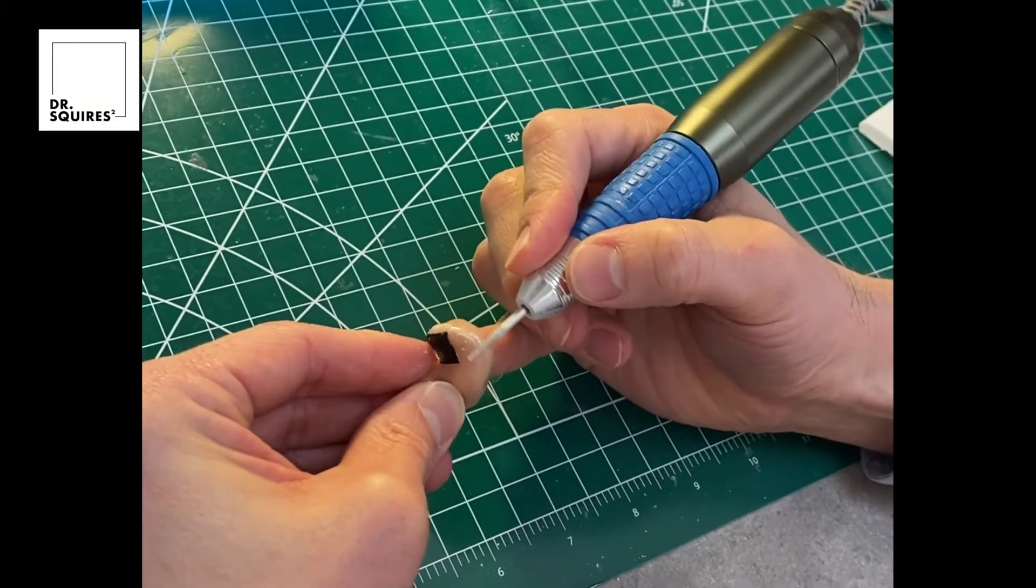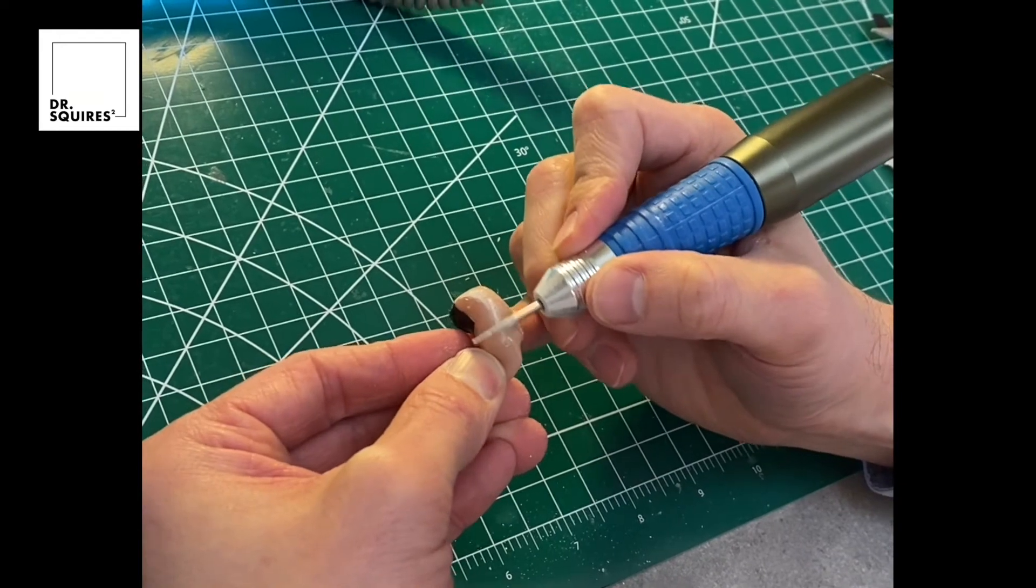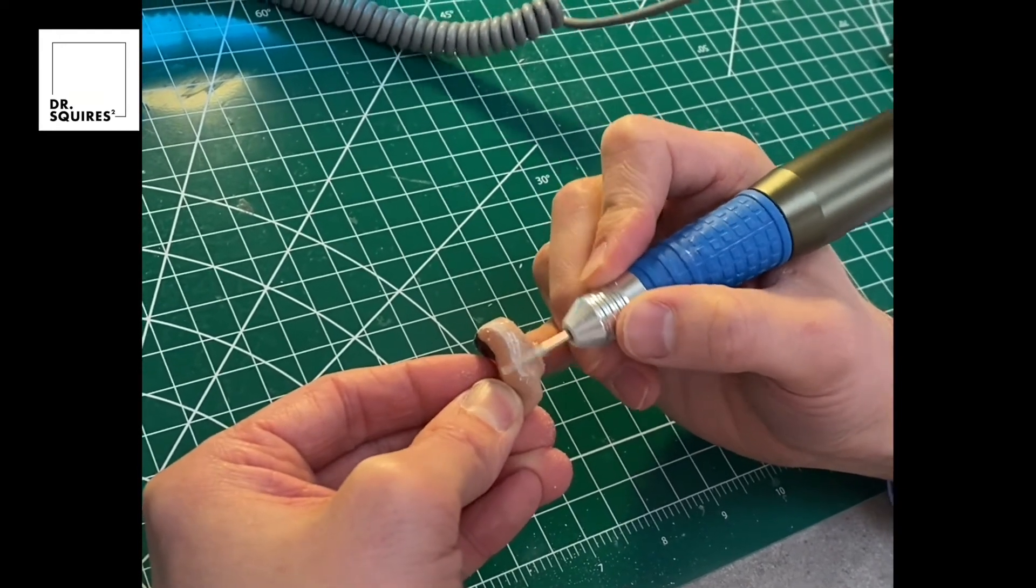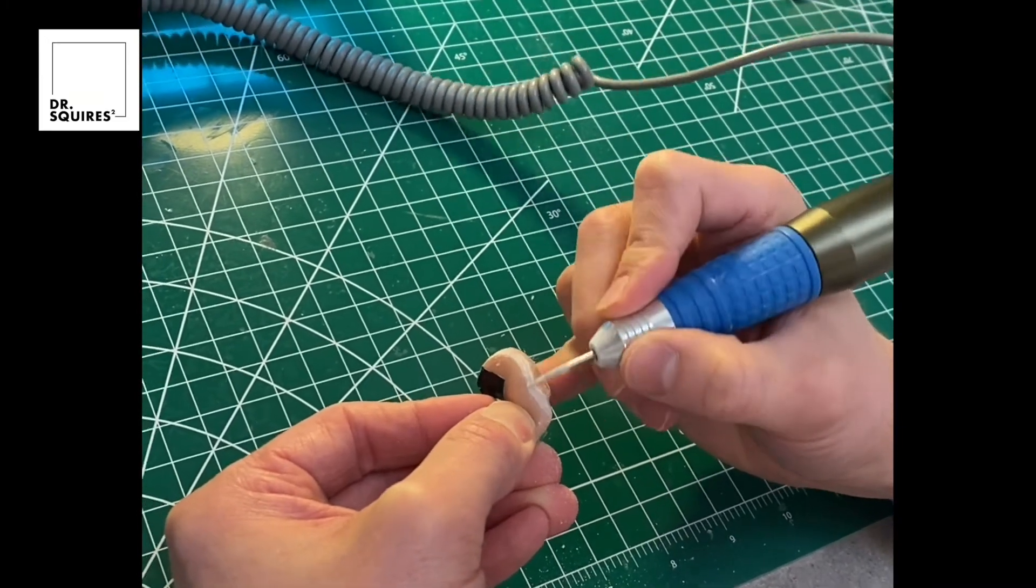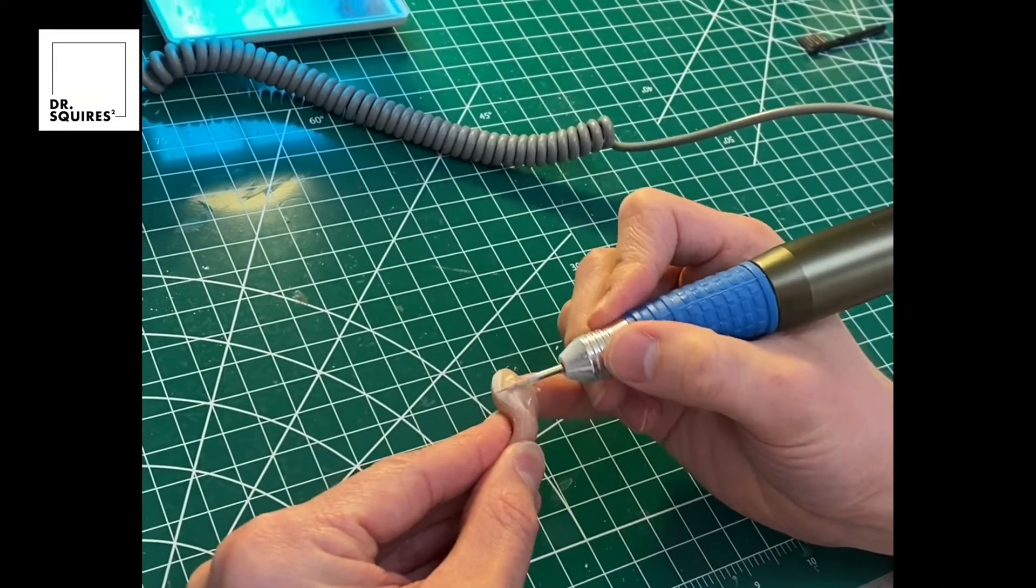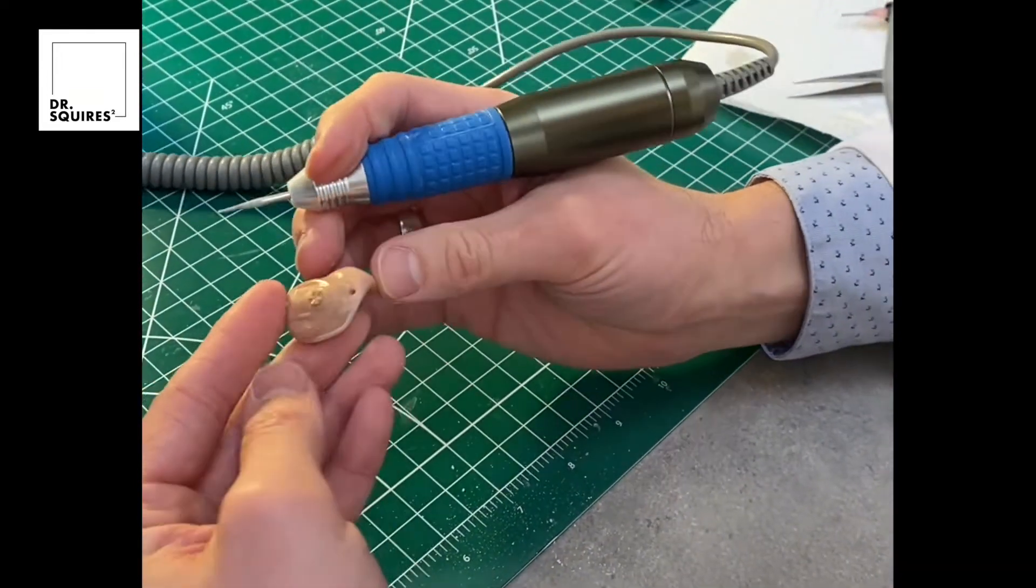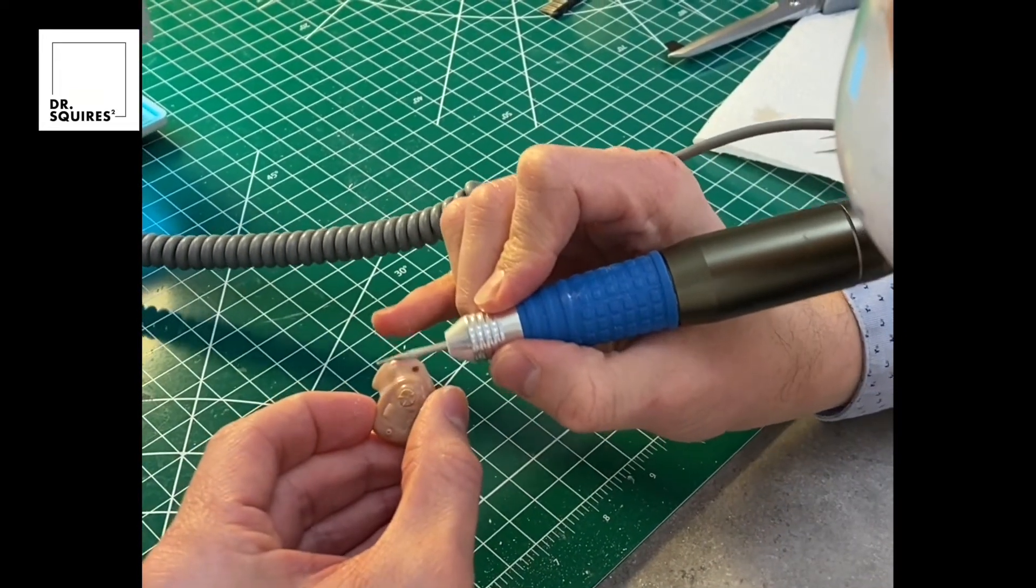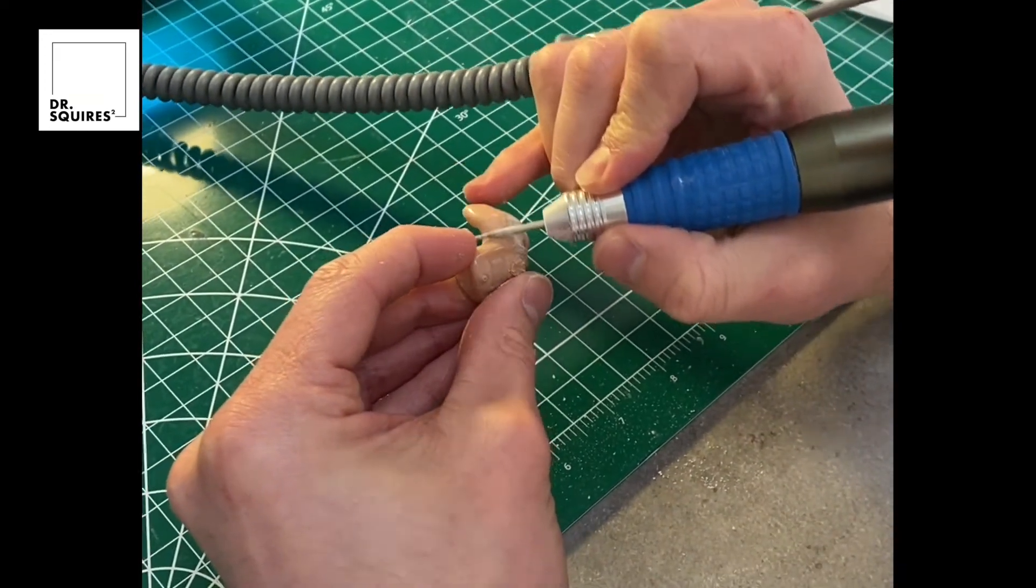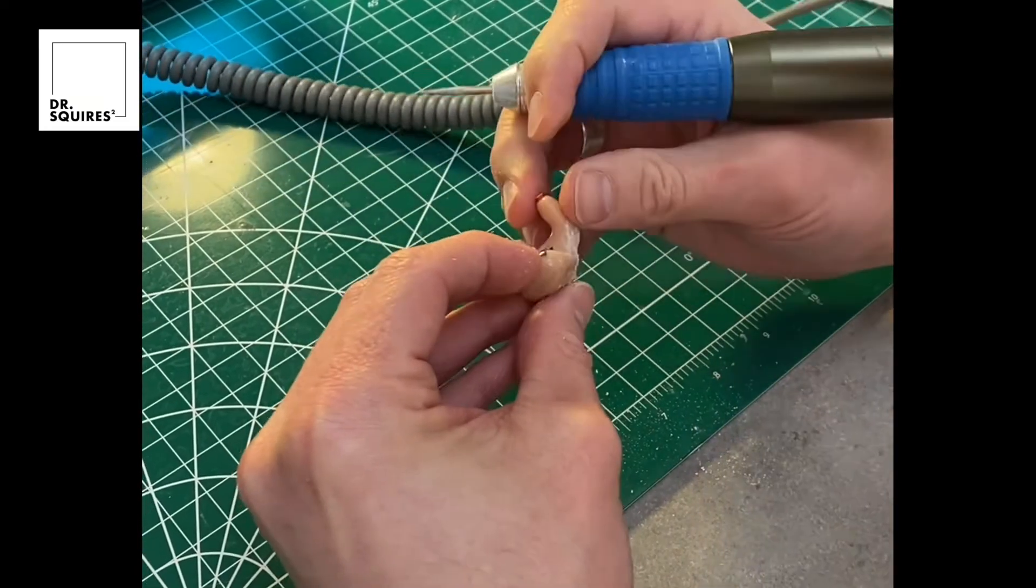We pulled the hearing aid out of the UV oven. All I am doing now is just smoothing out the layer of the UV adhesive that we put in. By this time it's already baked, it's already hardened, it is essentially one with the acrylic shell of the hearing aid. I'm going to smooth out all of the raised places here and just make sure that the entire hearing aid feels like one continuous piece as opposed to having any type of ridges or gaps.